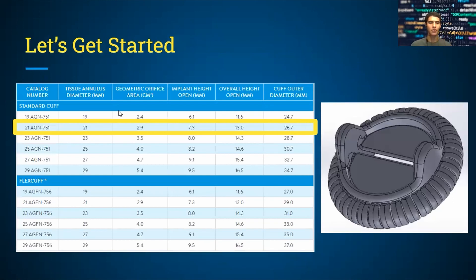Now let's get started with modeling. This is information on the specs available online publicly, and we'll switch over to SolidWorks at this point to begin making a new part.